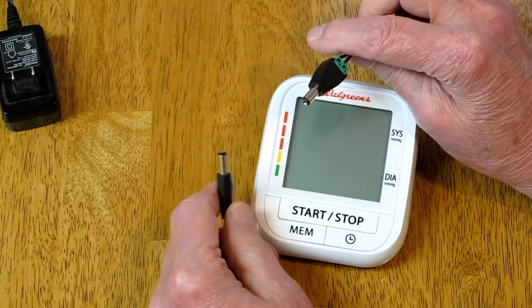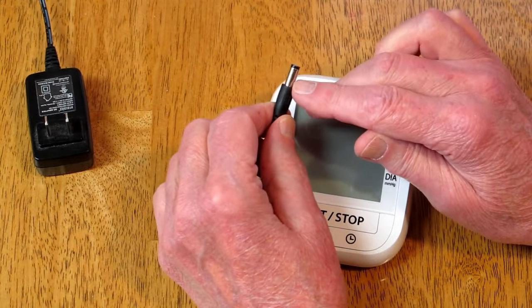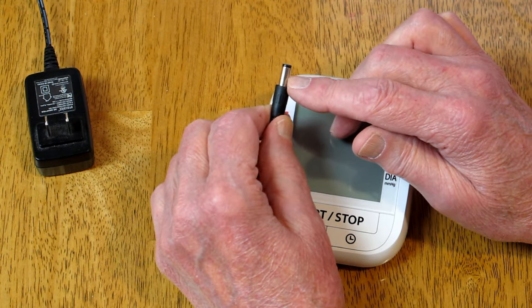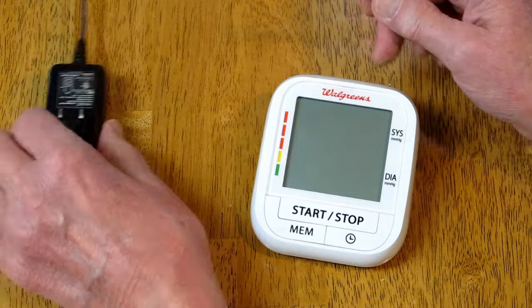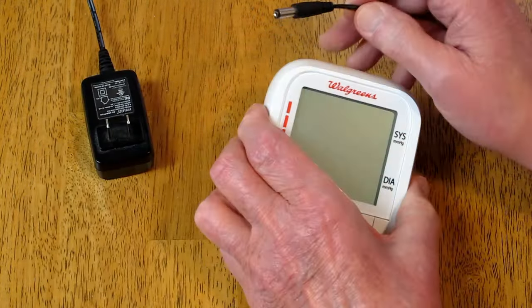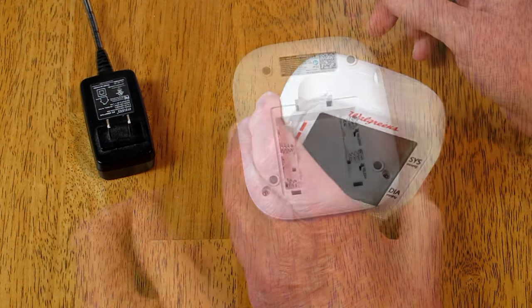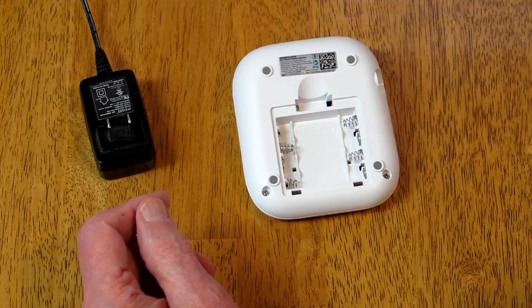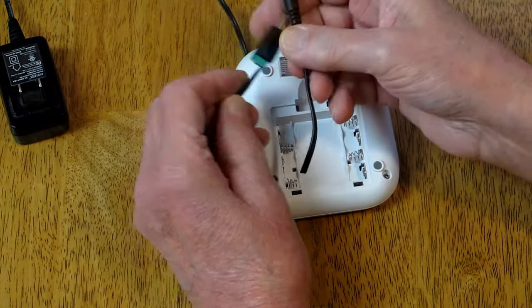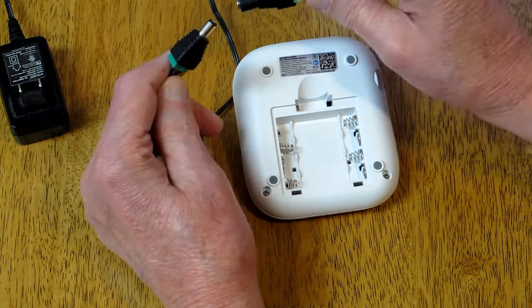The standard size connector is point zero four to point zero five millimeters oversize, and I suspect that's employed by the manufacturer to make sure you use their power supply in those blood pressure machines set up for it. I am not going to keep buying batteries to feed one of these, so I cut the plug off and put a compatible one on there.